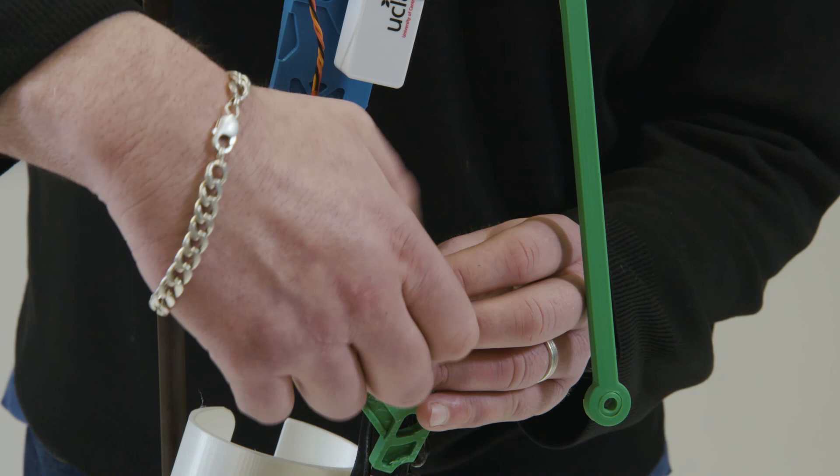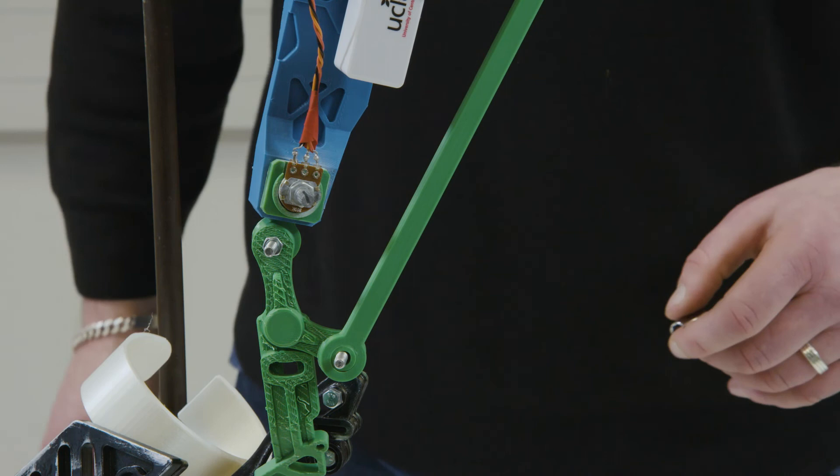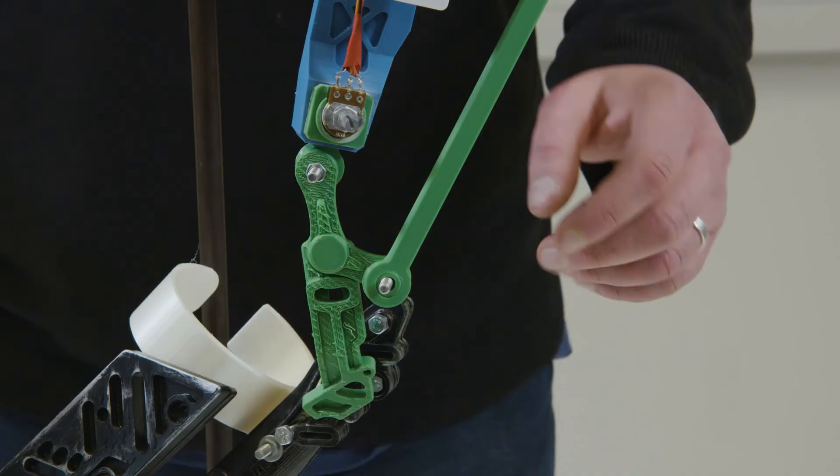So I am just going to tighten this up. So here is the thumb tightening. Again I am just using the other side to bring this back and I am going to push this through like that. If you have got this right what it should now want to do is almost fall to one side. See how that fell. Then finally let's add the nut on the elbow. So that is the first stage of the build.